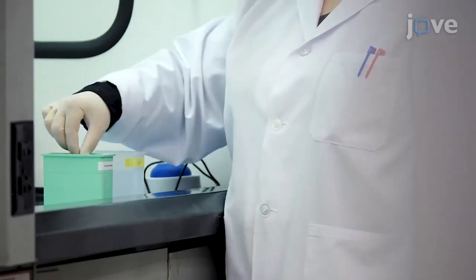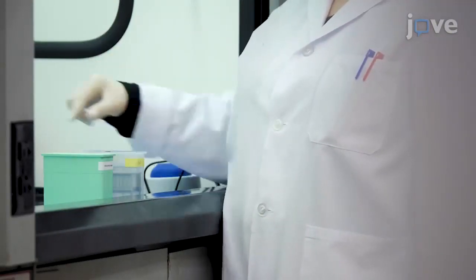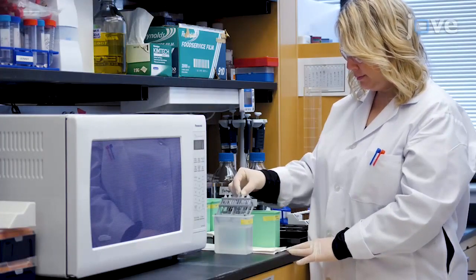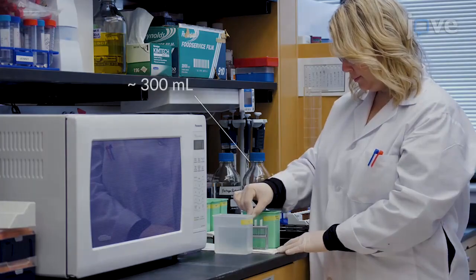Wash the slides with water for 2 minutes and proceed with antigen retrieval. Place the rack of slides into a heat-resistant box filled with pH 6 or pH 9 antigen retrieval buffer.